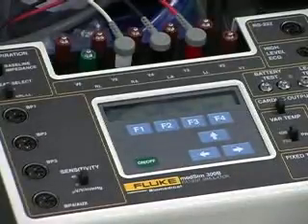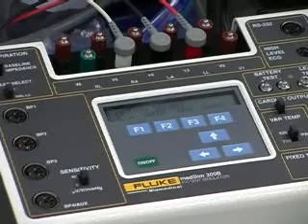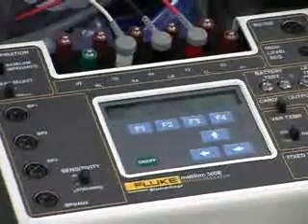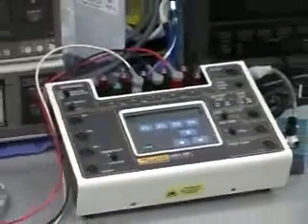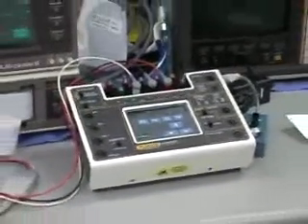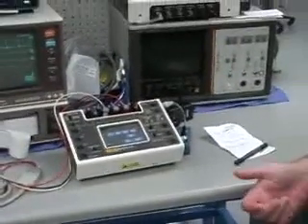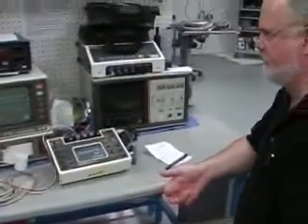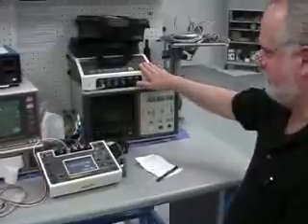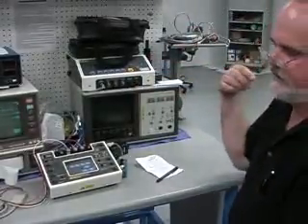Any questions on the ECG simulation mode or some other simulation parameters? I think we've got it pretty well covered here, but I beat you to death with it. With our equipment, we cover the full range: ECG, respiration, blood pressure, temperature, cardiac output, non-invasive blood pressure, and pulse oximetry with the index.